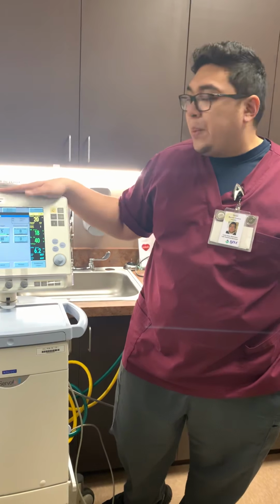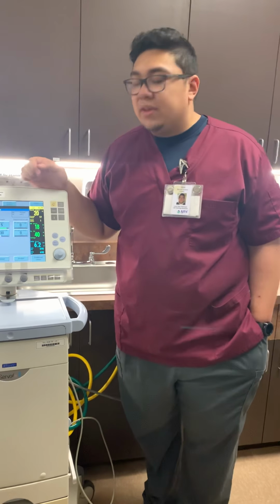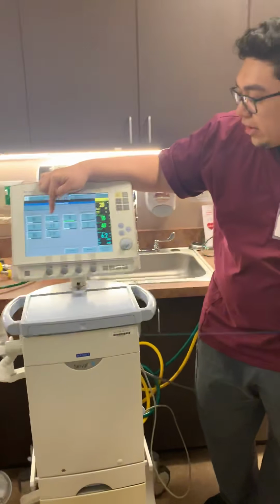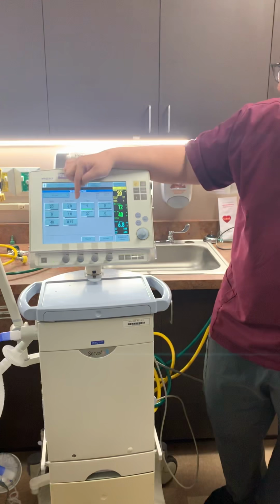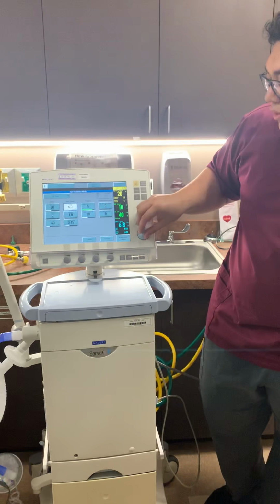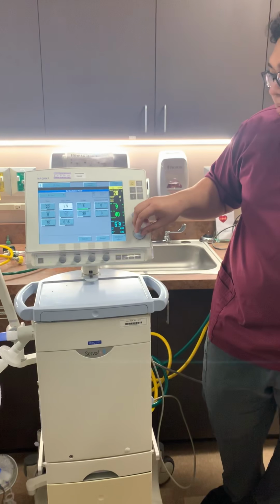It's a little bit easier on the servo. Other vents have this too. The servo is just the really accessible one that we have, and it's pretty easy to use because it explains everything. Here, it won't let you go below 0.2 for the inspiratory time. I've taken it down. Let's see. I'll take it down to 3.0.